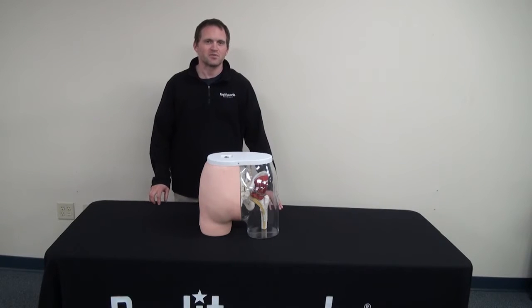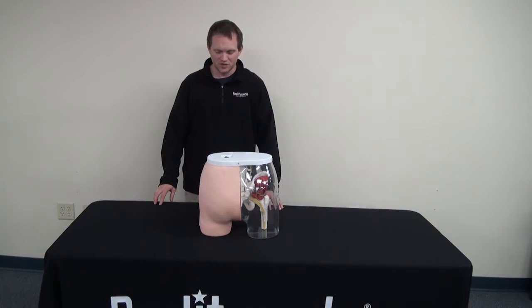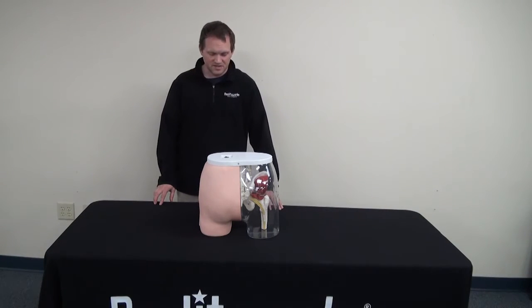Welcome to another continuation of our product support training videos. Today we will show you how to use the Buttocks Intramuscular Injection Simulator.